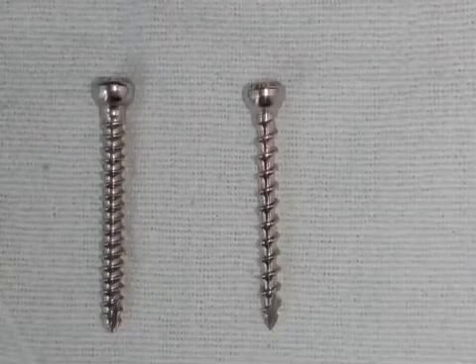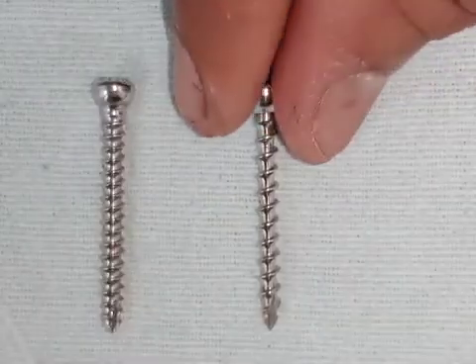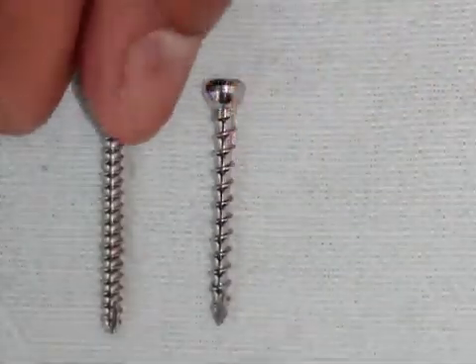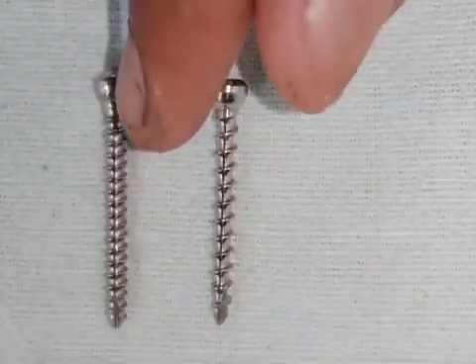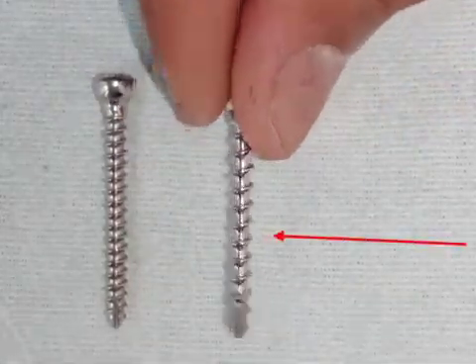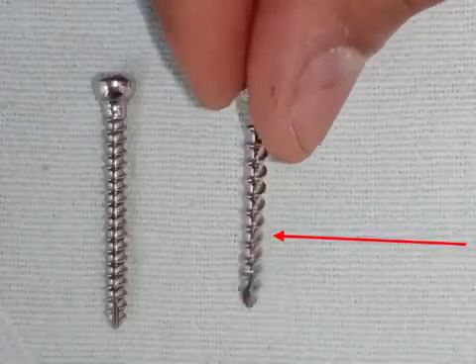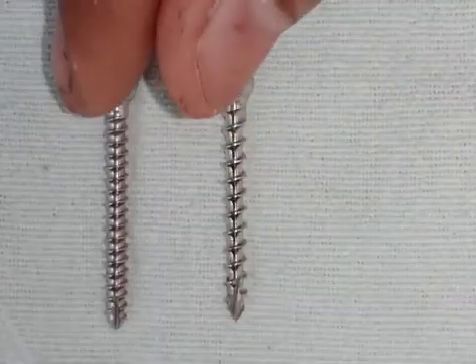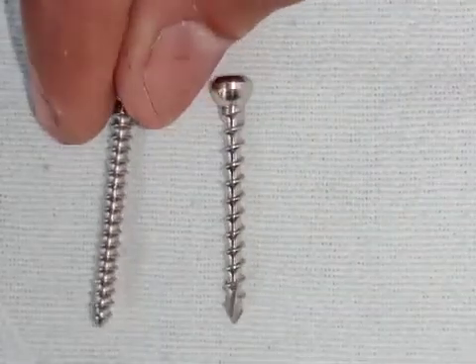Let us see what the difference is between this screw and this screw. Both of them are of the same size — both are from the 3.5 system — but there is a small difference in the threads. If you look carefully, you can see that the threads of one screw are very broad and come out a large amount from the shaft, while the other has very short and very small threads.